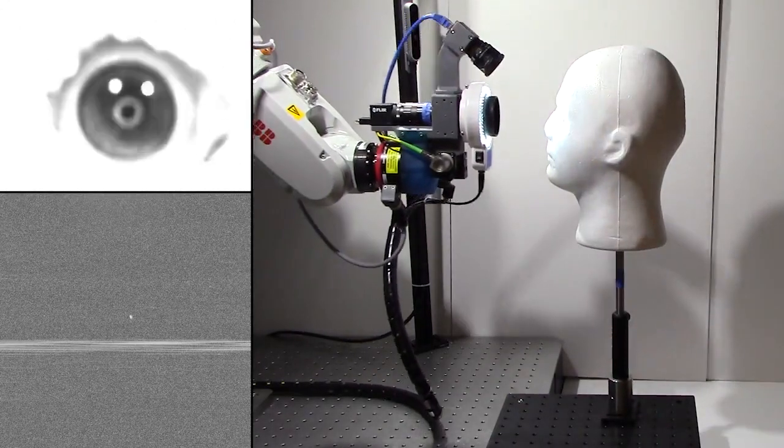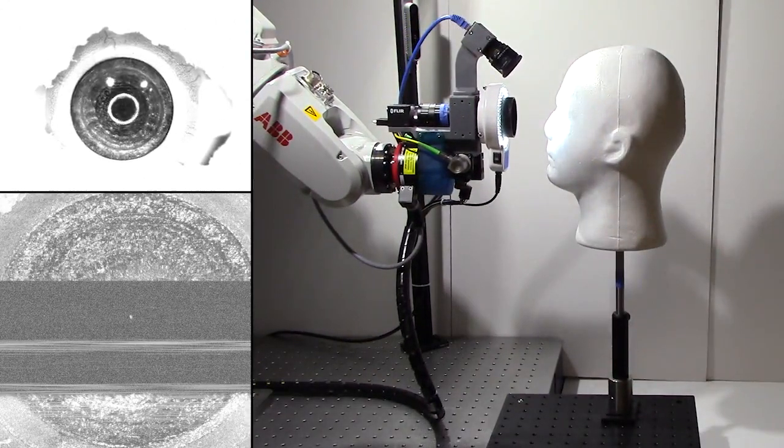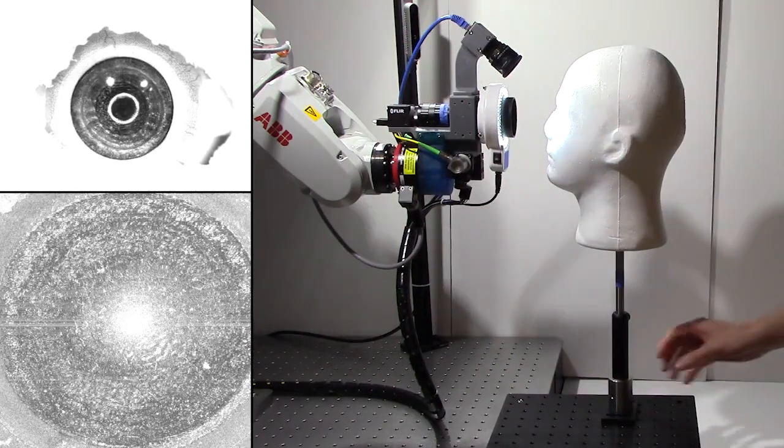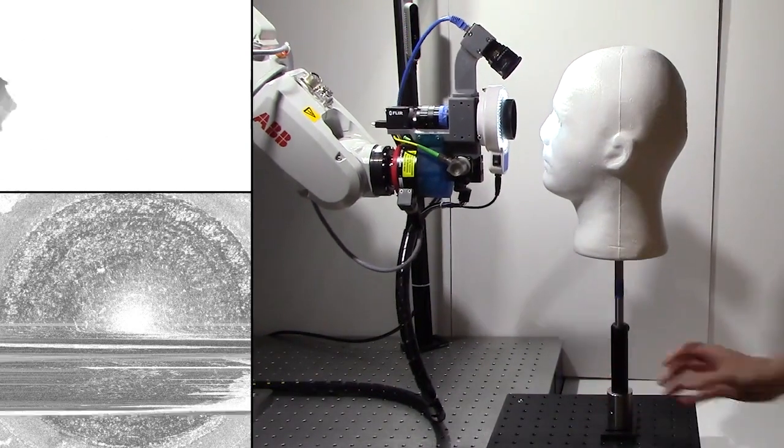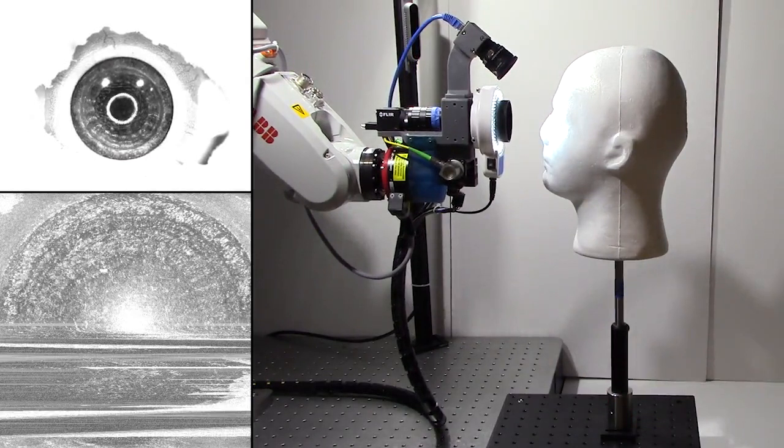From the start position, both eye tracking cameras have an unobstructed view of the full tracking workspace. This allows the scanner to safely recover even if it loses tracking of the face.